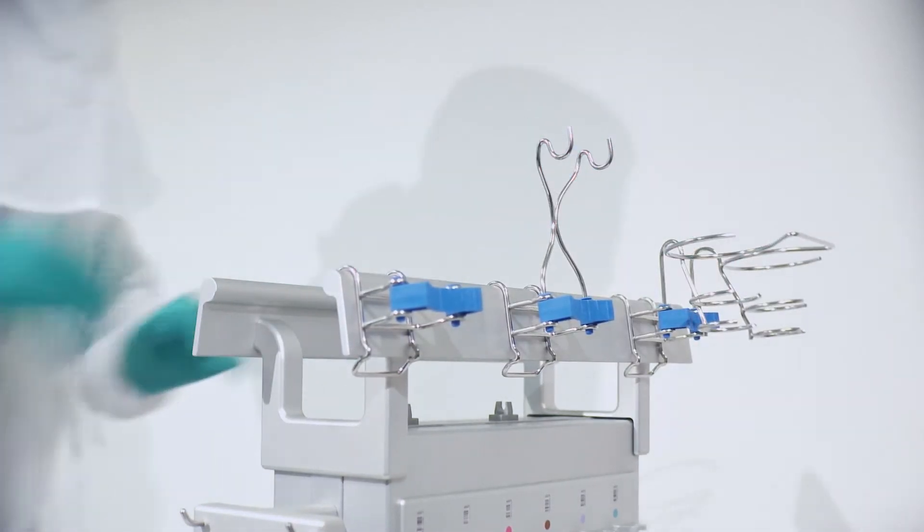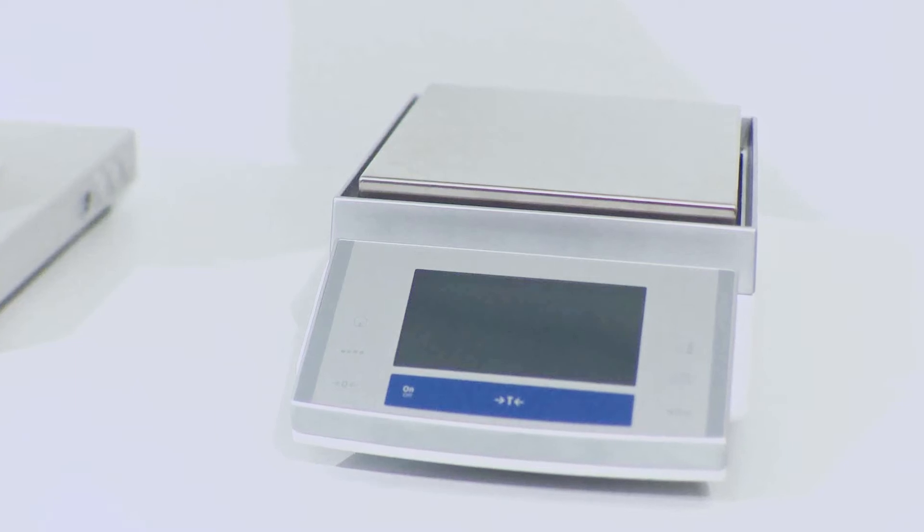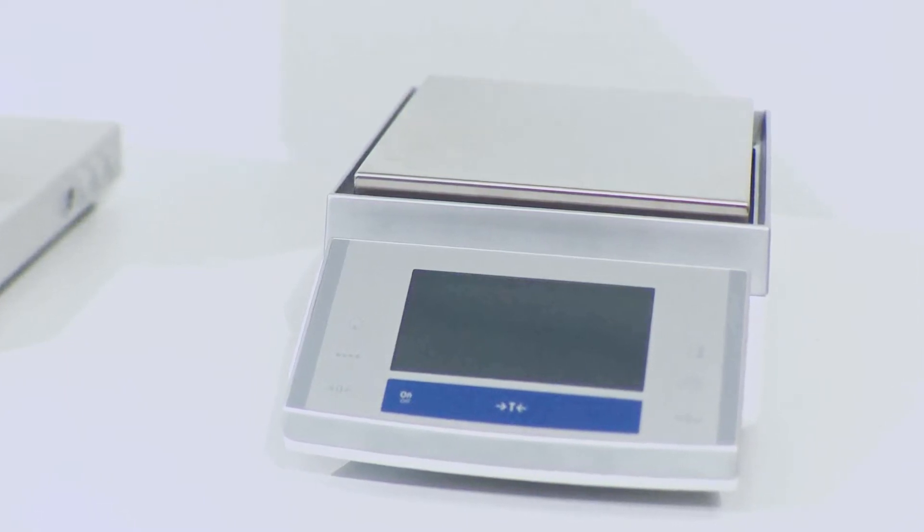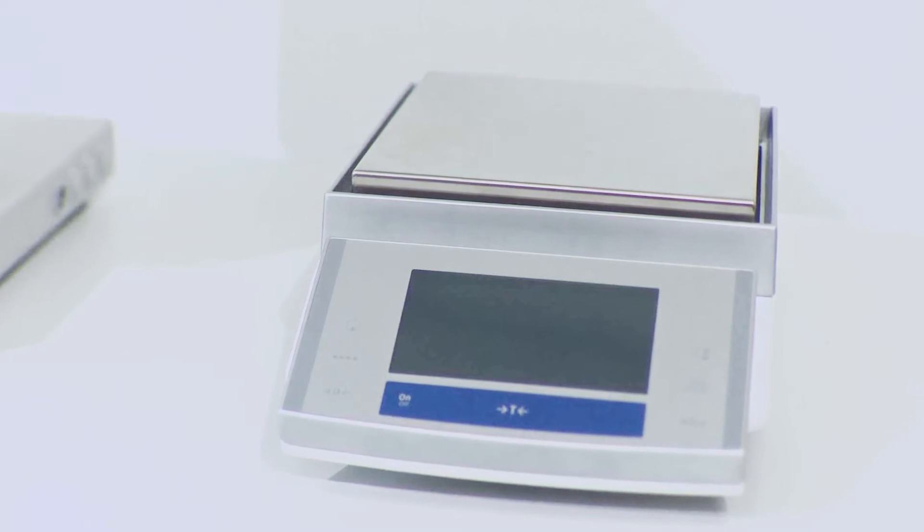The Medimix Multi is a volumetric compounder which can be interfaced to an external scale in one of the three following ways: stand alone, connected via cable or via network.